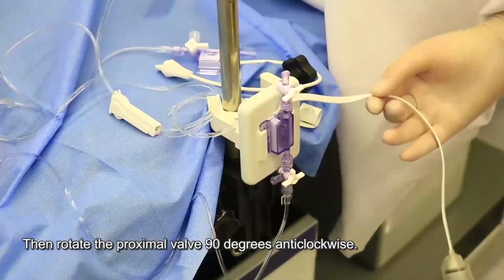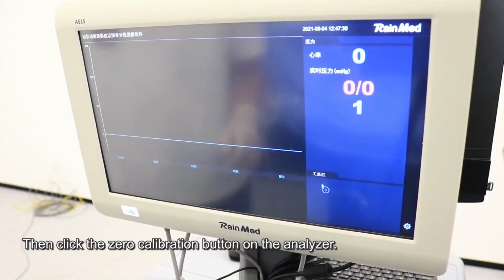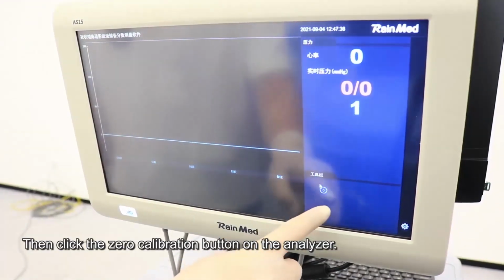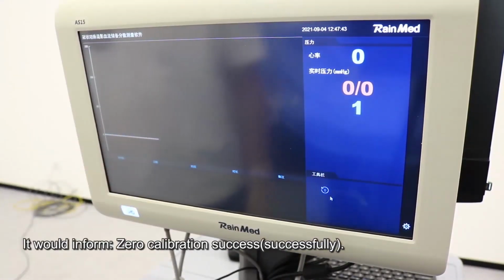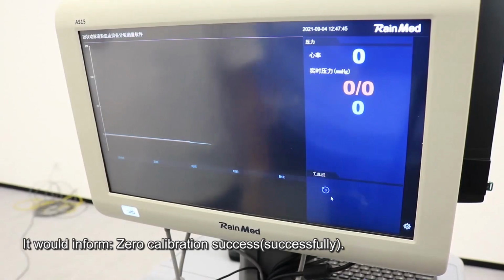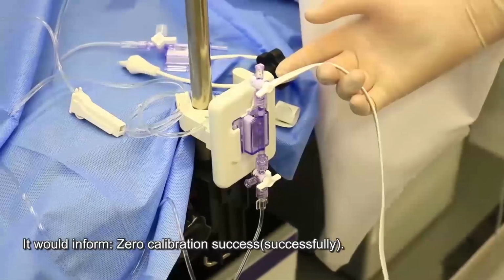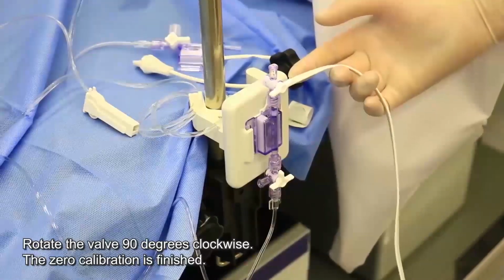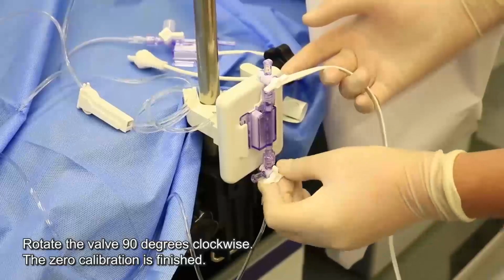Okay, then click the zero calibration on the analyzer. It would inform us the zero calibration succeeded. Okay, then rotate the valve 90 degrees clockwise.